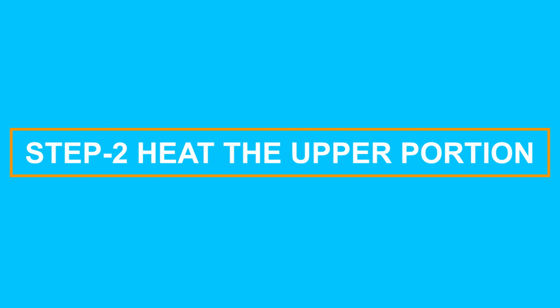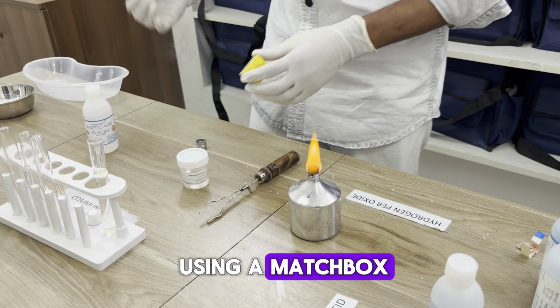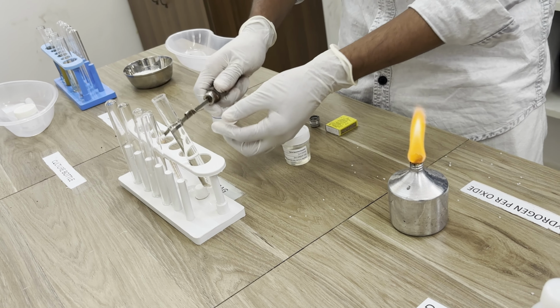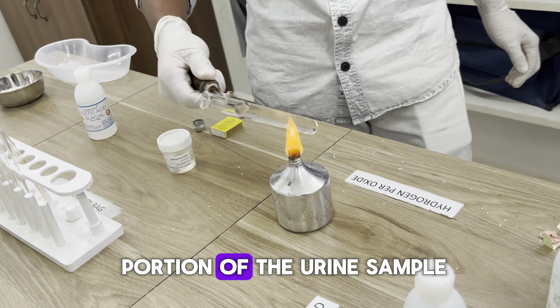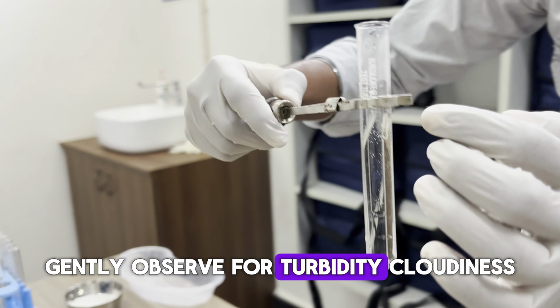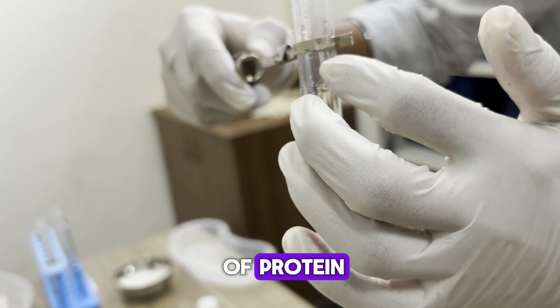Second step, heat the upper portion. Light the spirit lamp using a matchbox. Hold the test tube with a test tube holder. Heat only the upper portion of the urine sample gently. Observe for turbidity, cloudiness, which indicates the presence of protein.